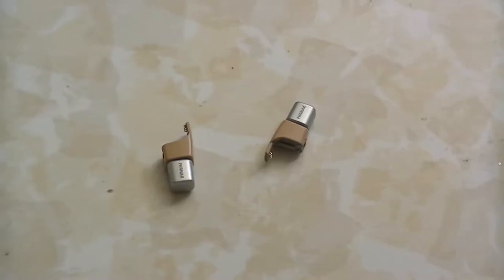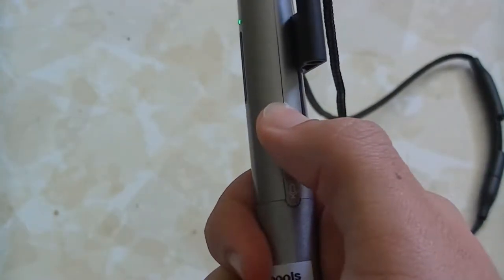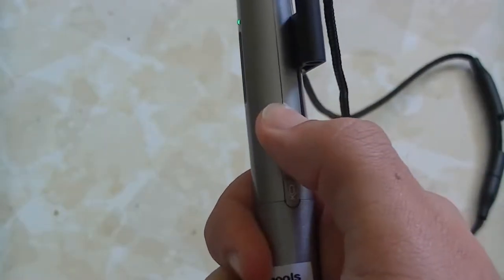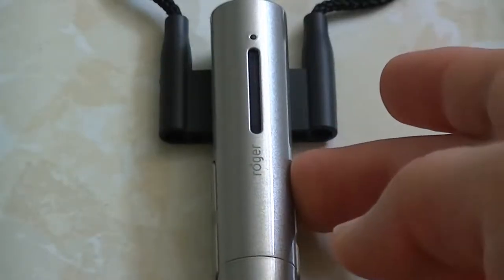The DM or FM system I'm using is the Phonak Roger Pen, which connects to the modular receivers, which I usually have attached to my hearing aids while using the system. The main thing you need to know is that the button on the right side of the pen is the power button — not the two buttons on the left side. To toggle the system between on and off, press and hold the power button for about a second. The indicator light will fade red when turning off or green when turning on.